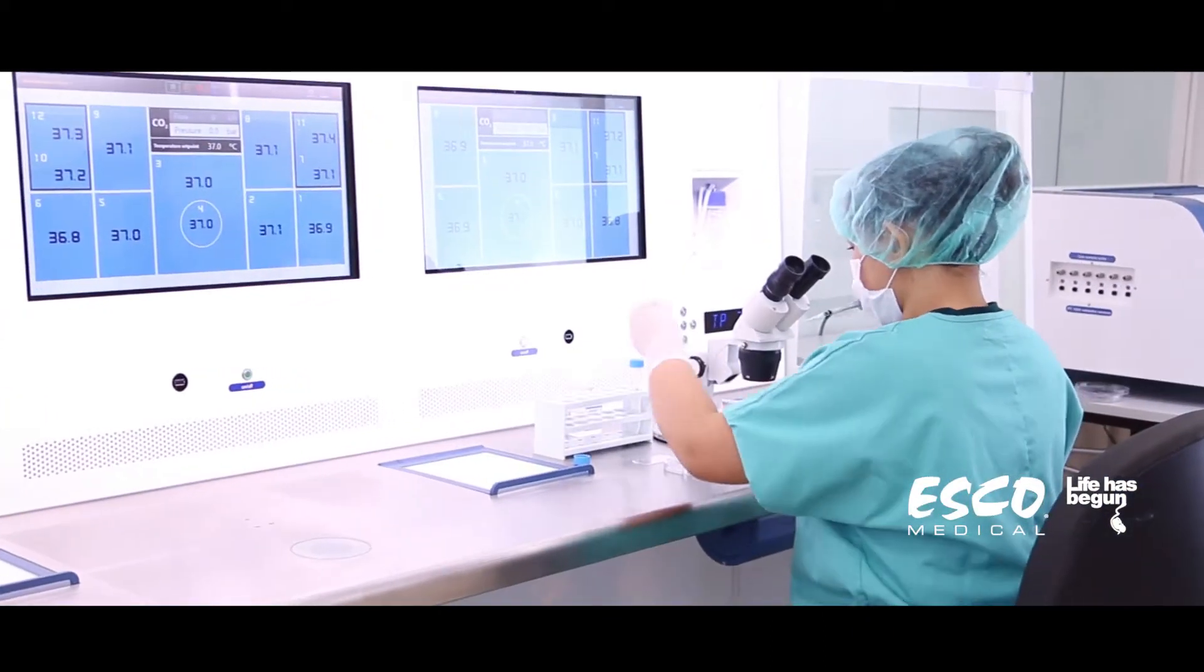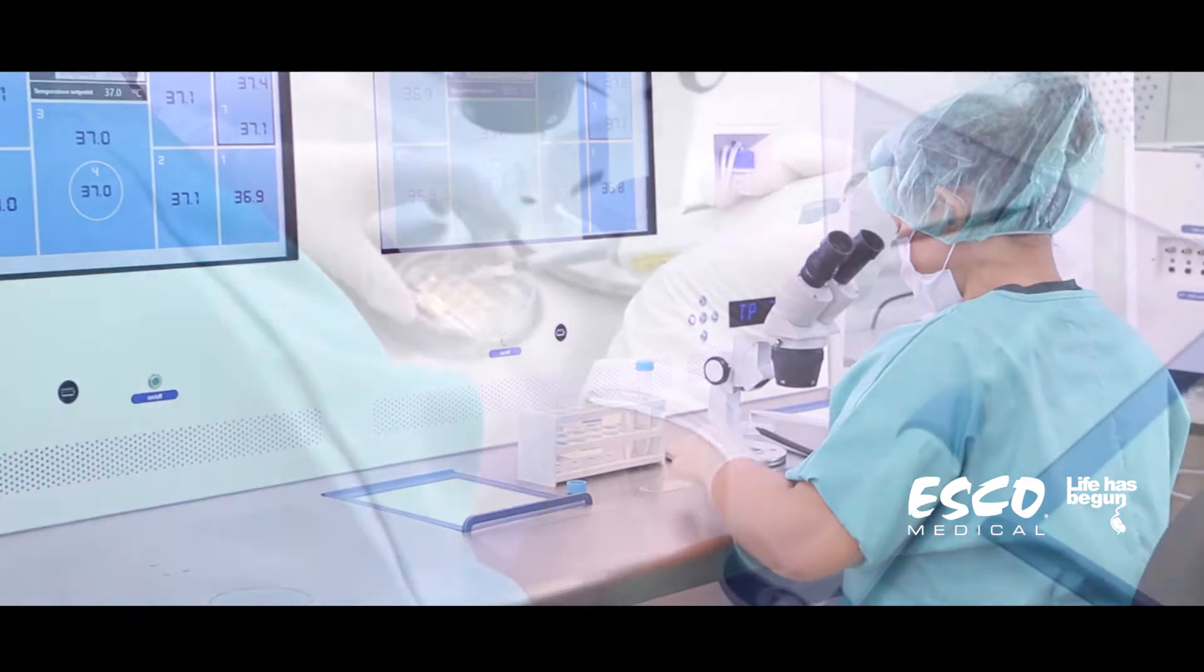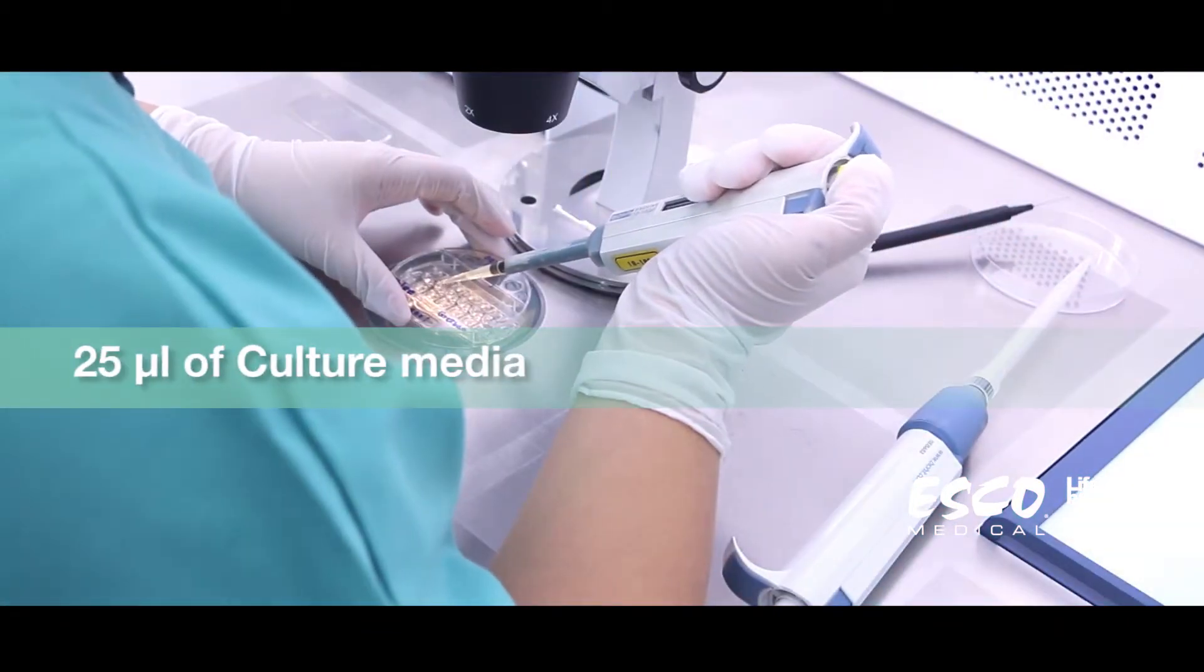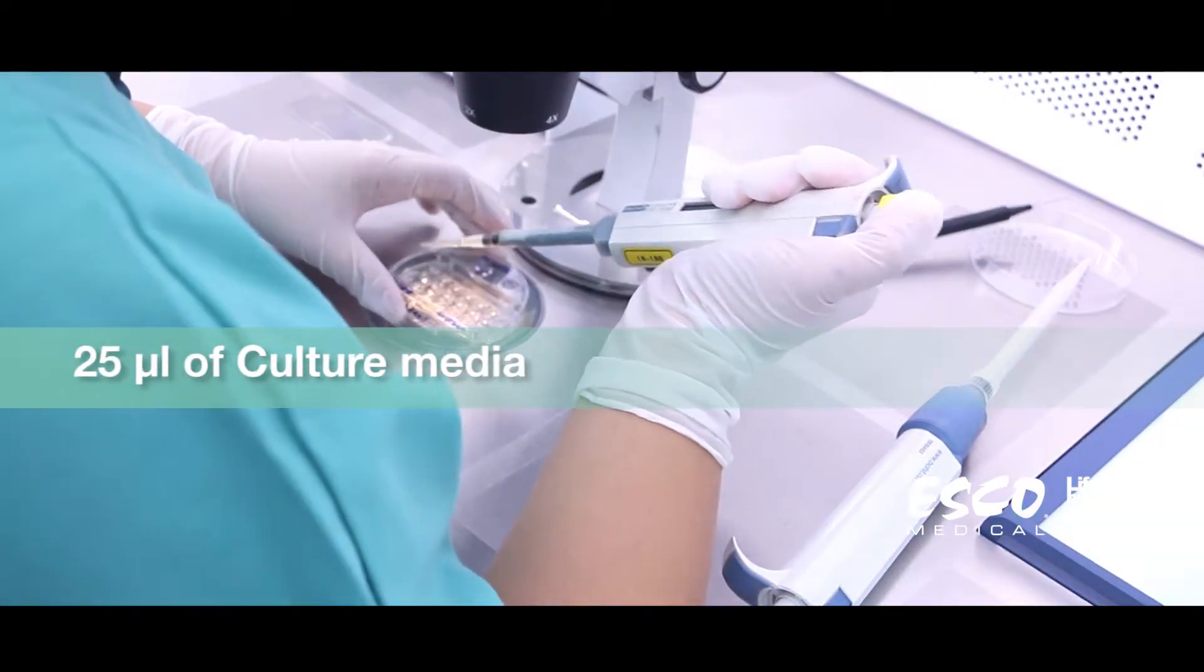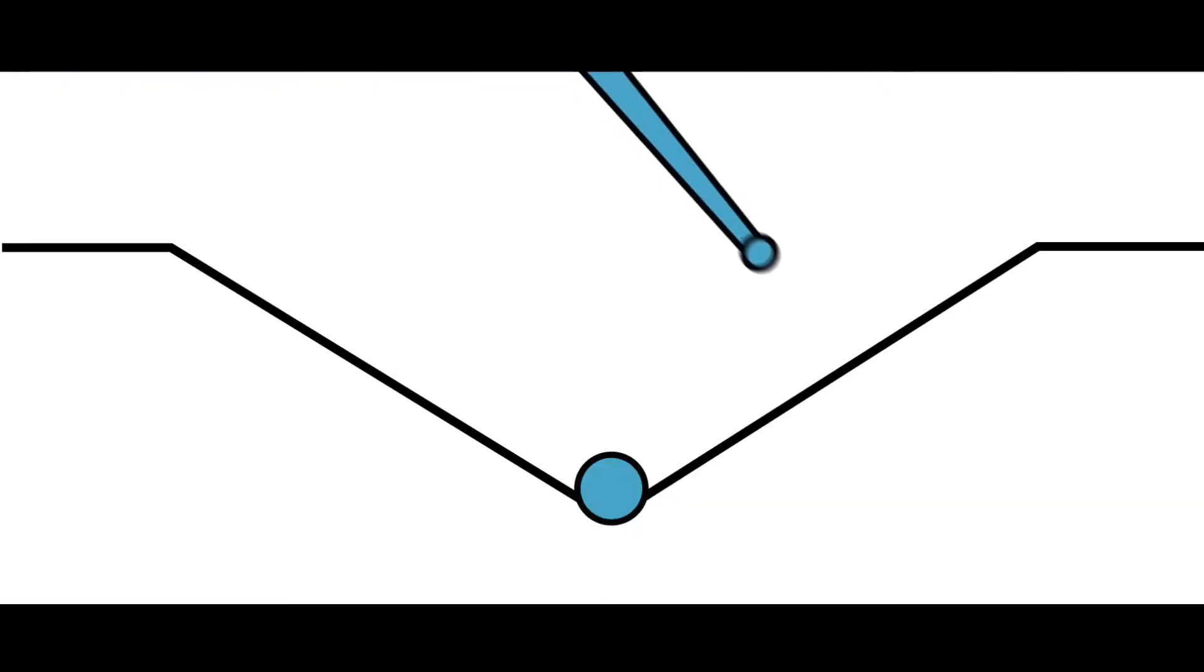Always ensure that you work inside an IVF workstation. Load the culture coin with 25 microliters of media under the microscope. Do not inject the media directly on the bottom of the well. Fill it on its wall.